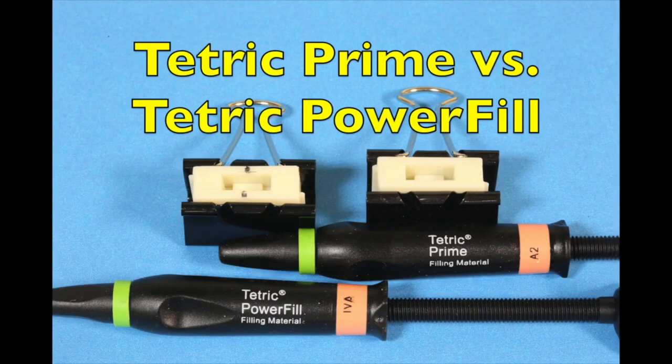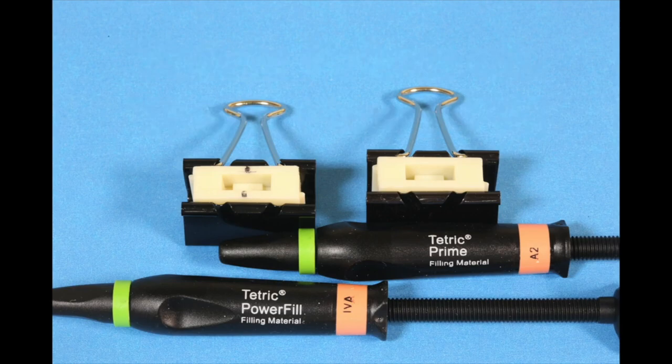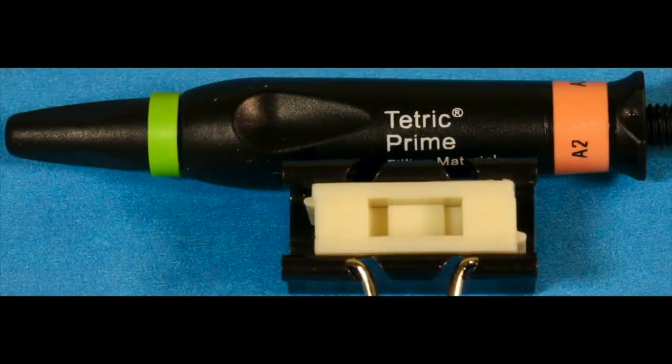To demonstrate this in the video, I'm going to use Tetric Prime and Tetric Power Fill and this custom mold that I've developed.